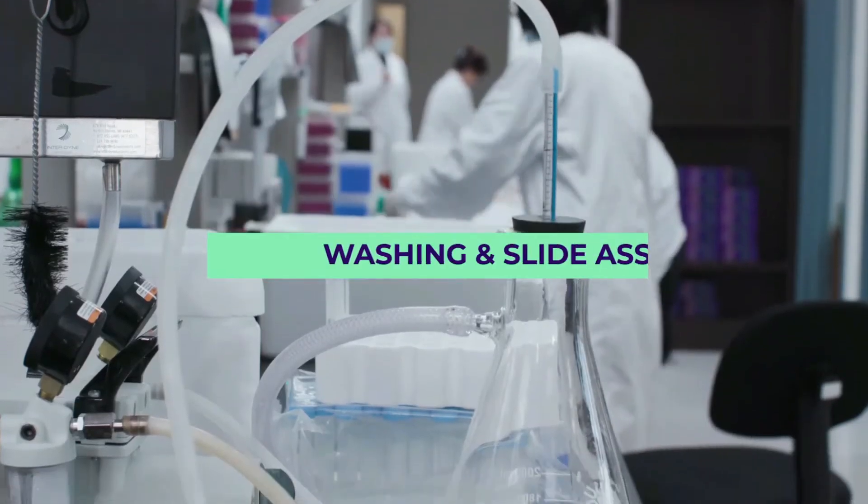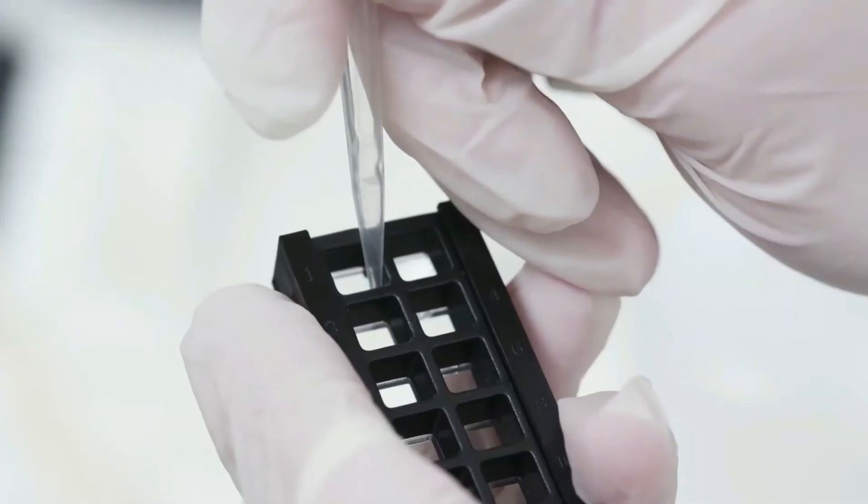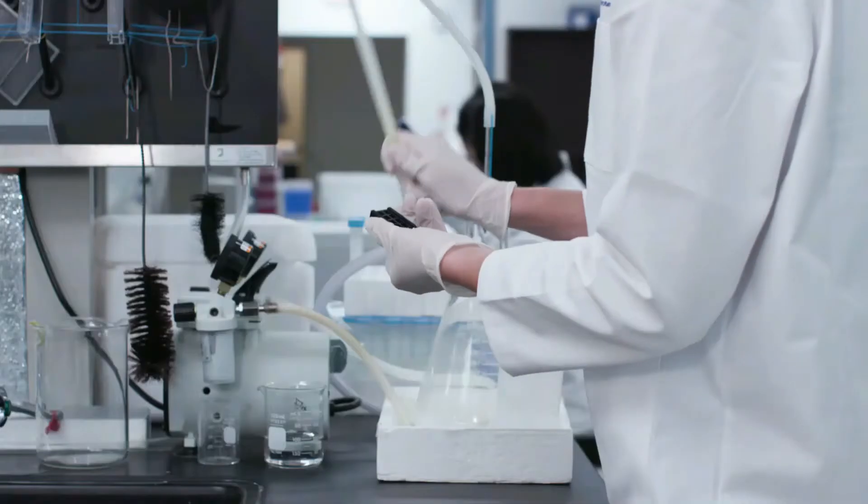Much like running an ELISA, good washing technique is critical. When aspirating the wells, tilt the slide and place the pipette tip in the lower right corner to ensure complete removal of the liquid without touching the array spots.